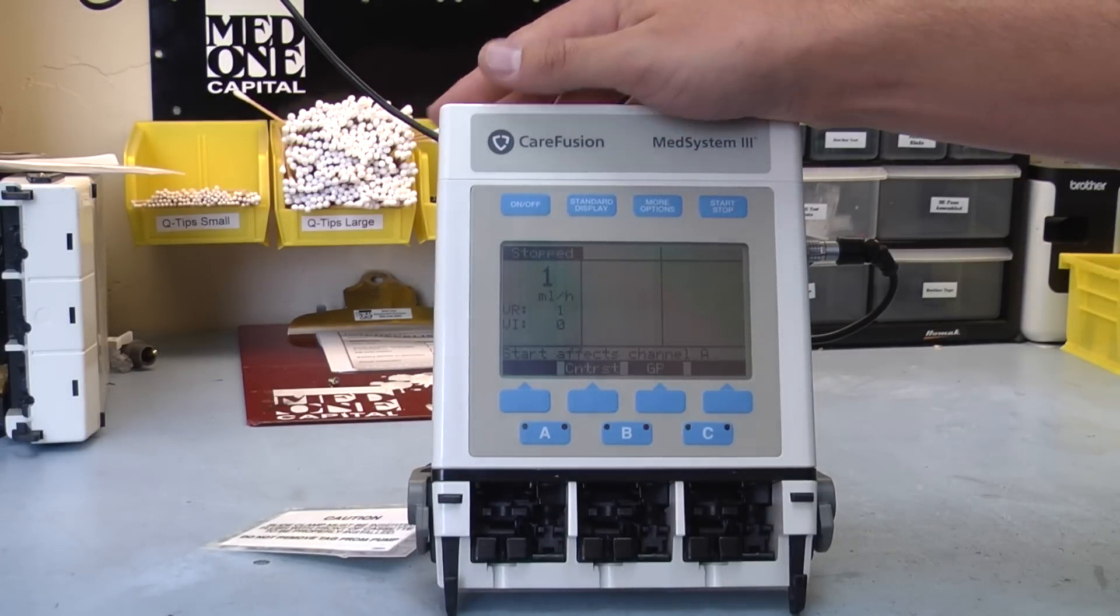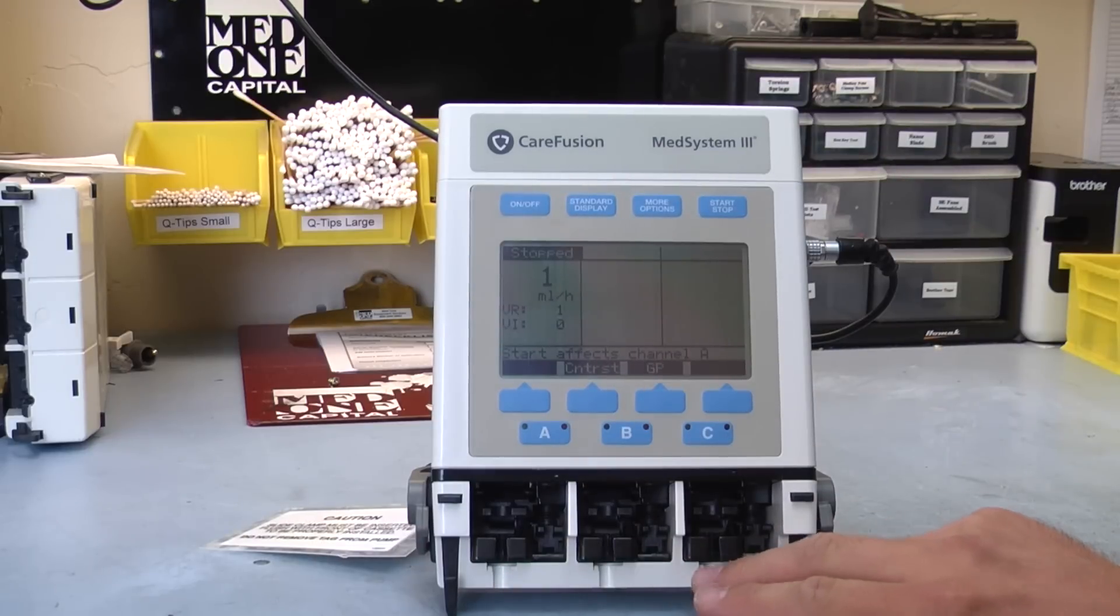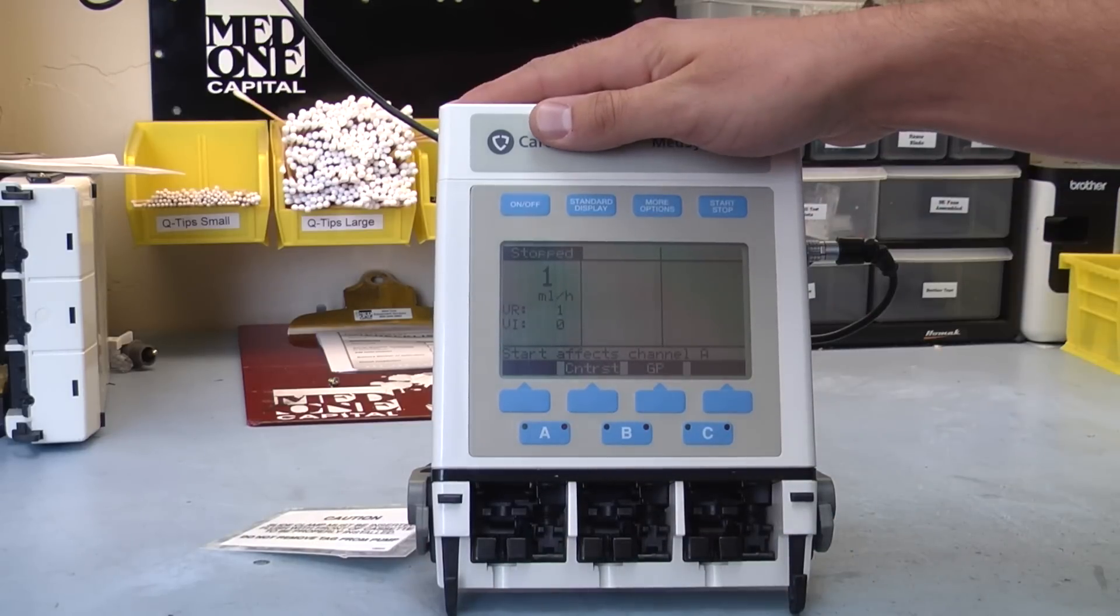With the three channels you're able to deliver three different drugs to the patient, you're also able to deliver those drugs at three different rates.